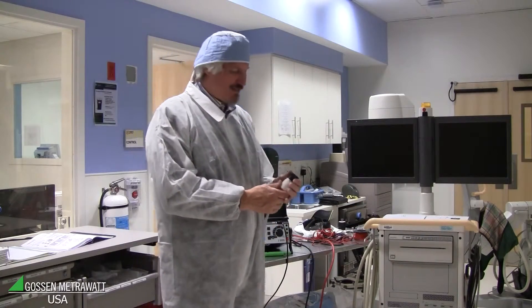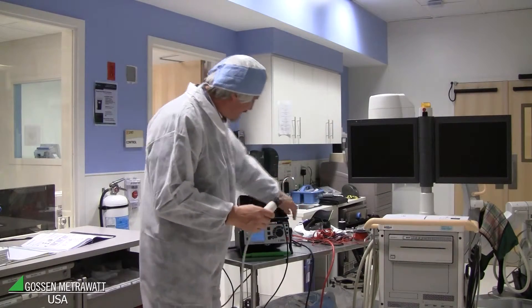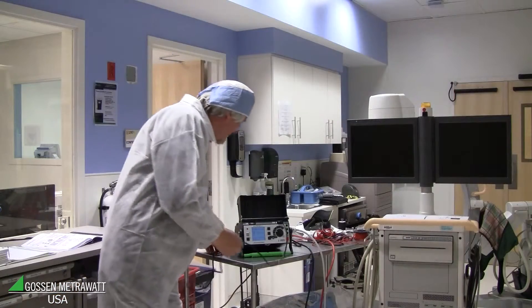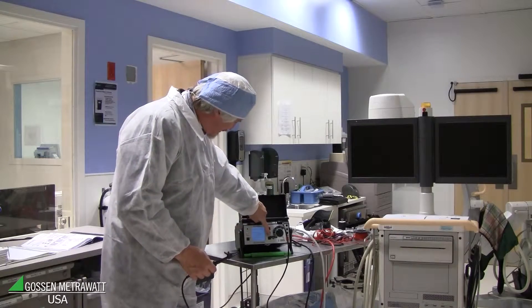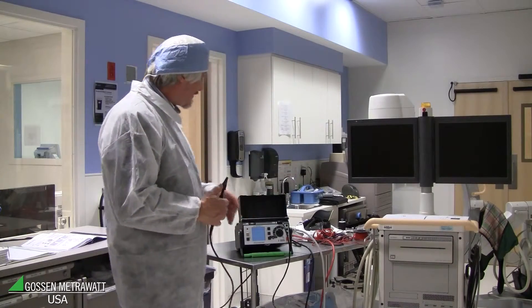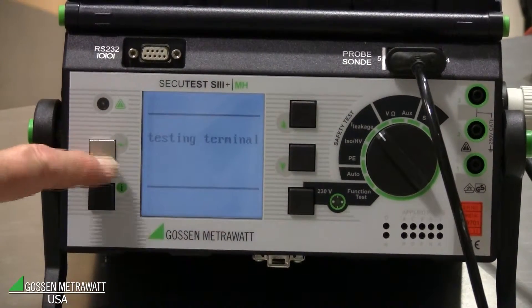This mobile X-ray equipment has a normal plug, which is connected to the tester and the test socket. We start the measurement — it's a leakage current and touch current test. The tester checks if equipment is connected and makes some preliminary tests before starting. We switch on the power of the equipment and can then see the RMS value of the touch current.